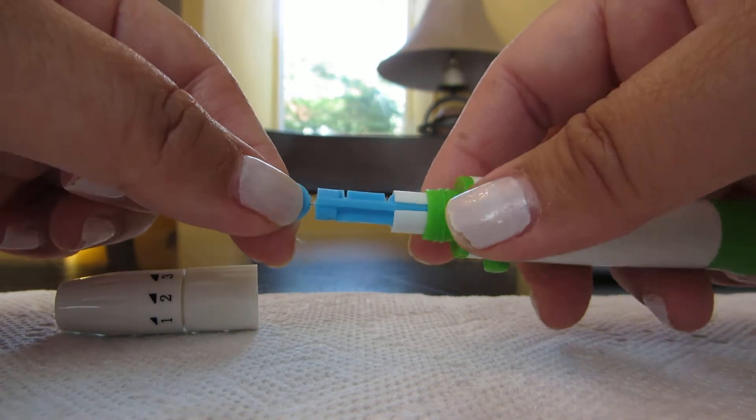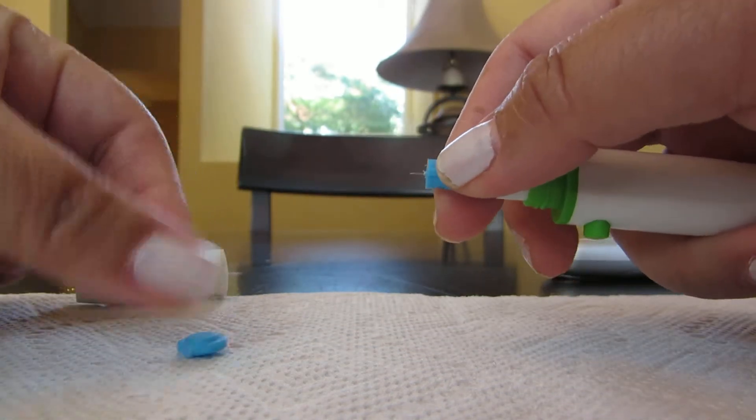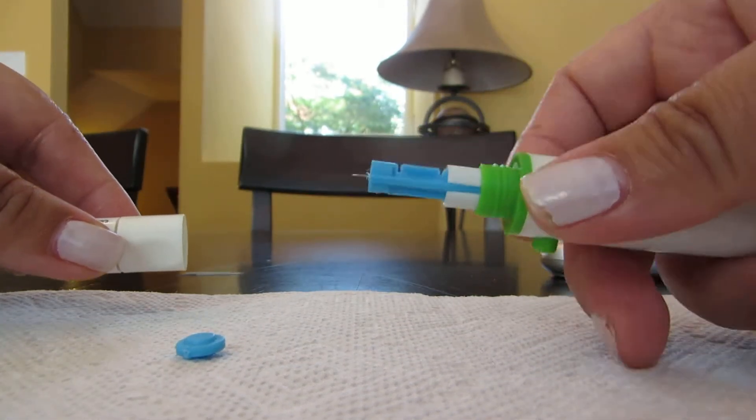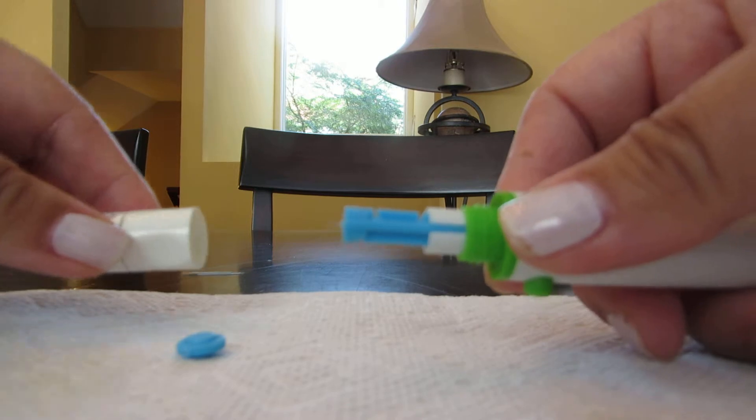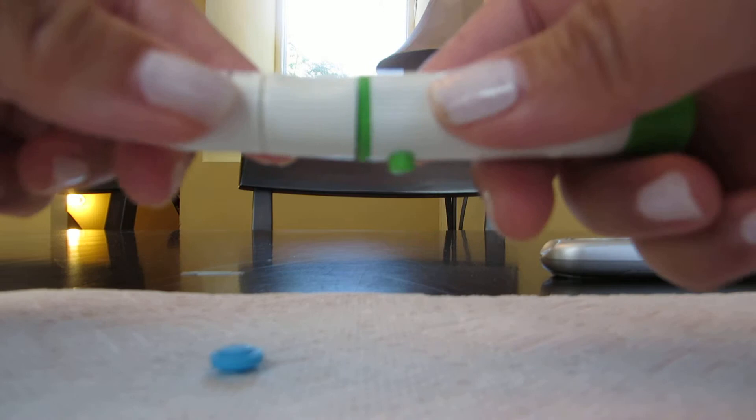You need the needle exposed, so once you take the cap off and have the needle exposed, you put the lancet back together.